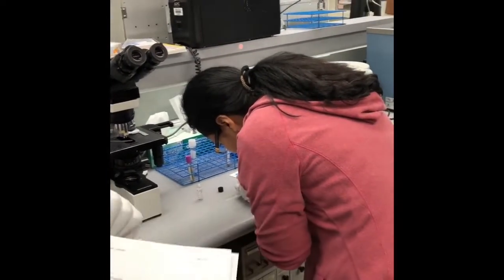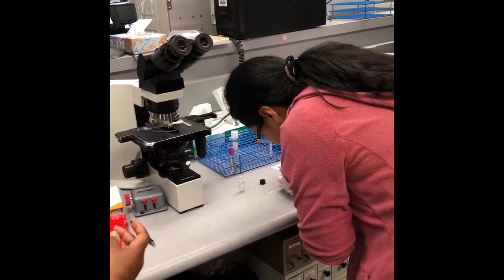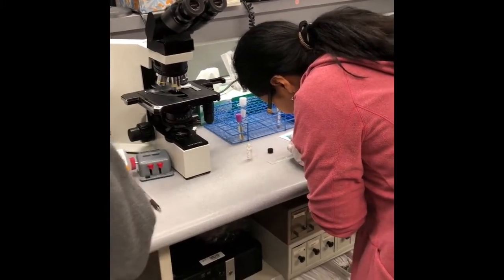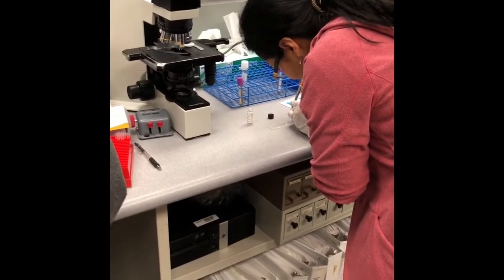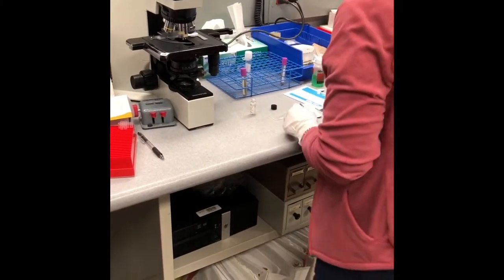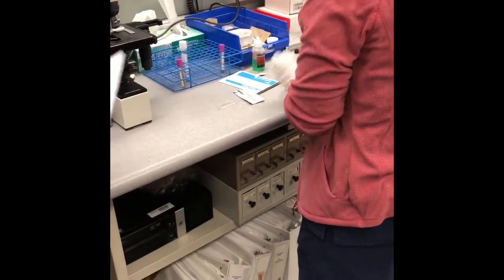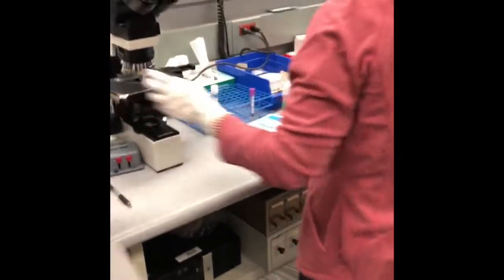So what are we doing right now? I think we're gonna see. Did all of our manual counts. She's doing level 2. Yes, because it's a high one. That's the high one.